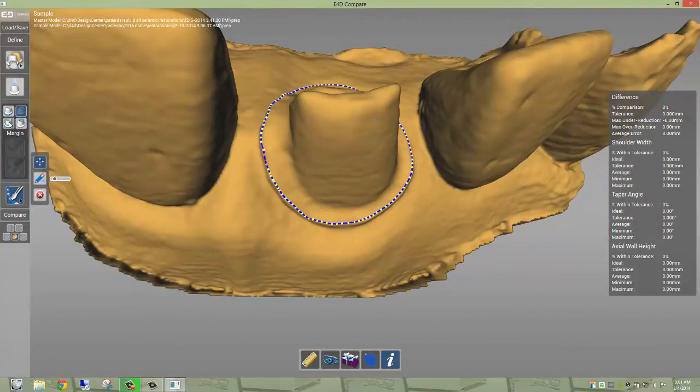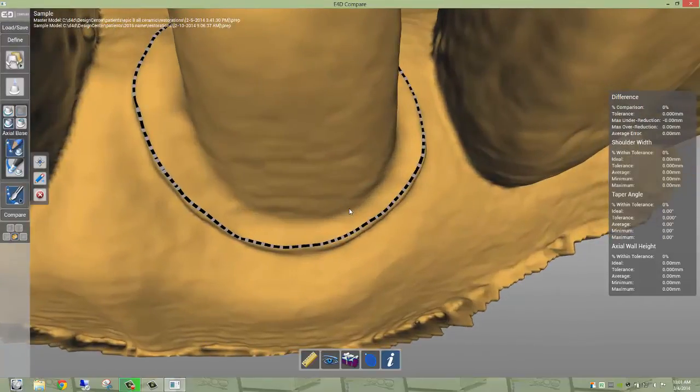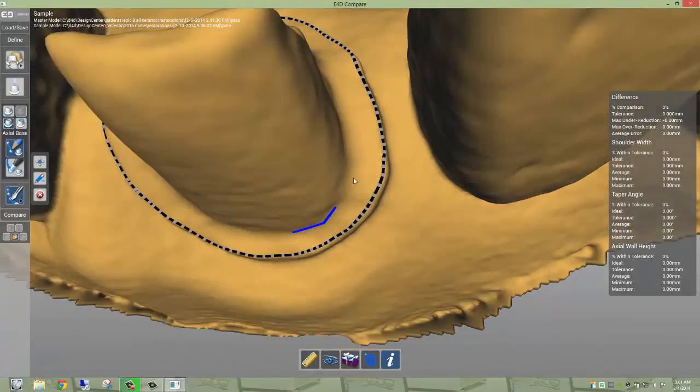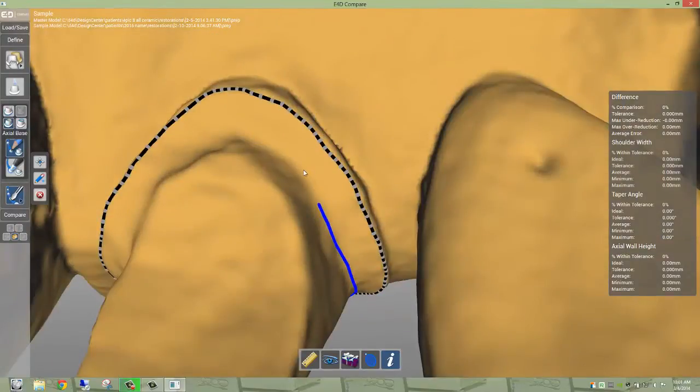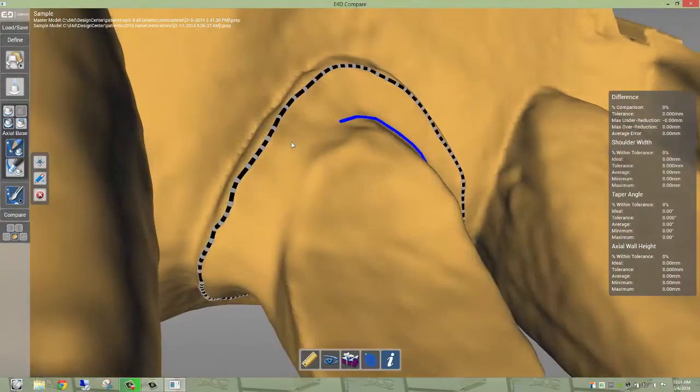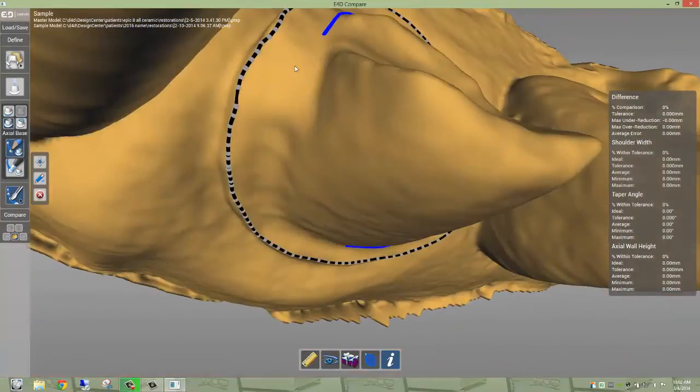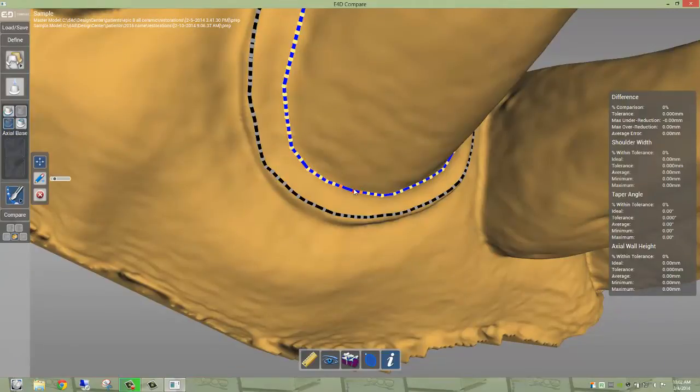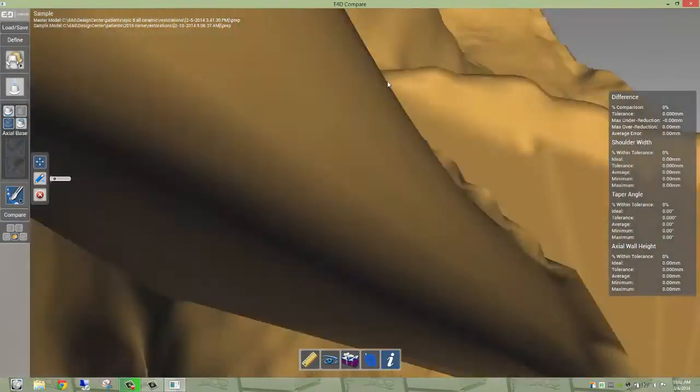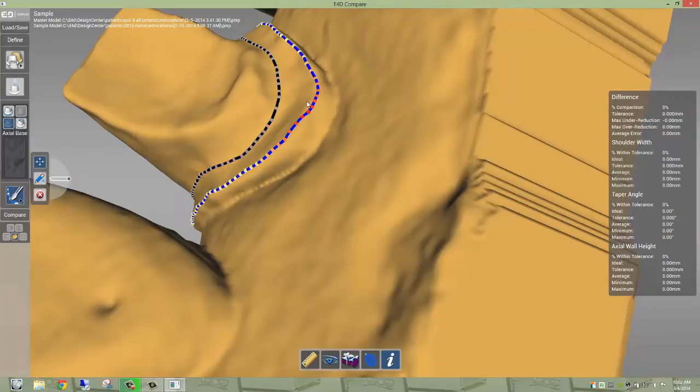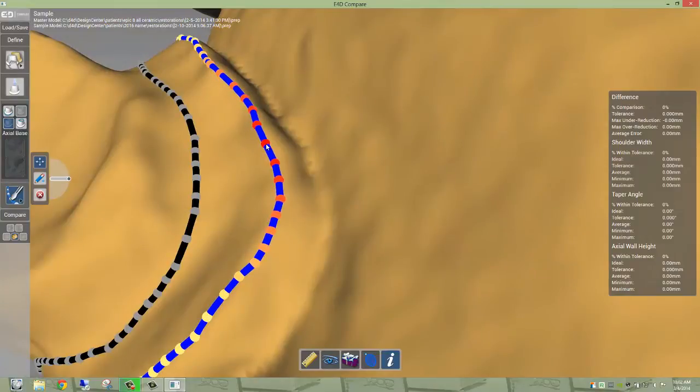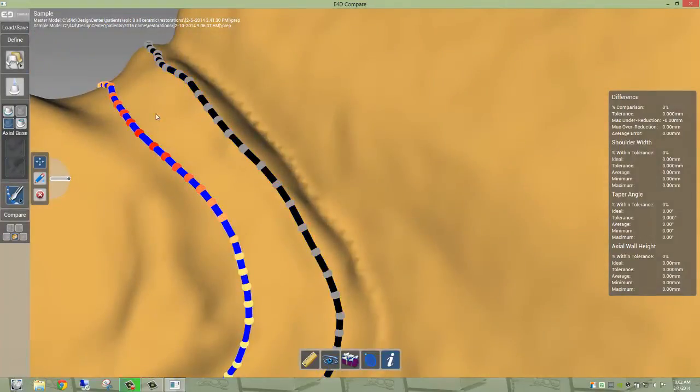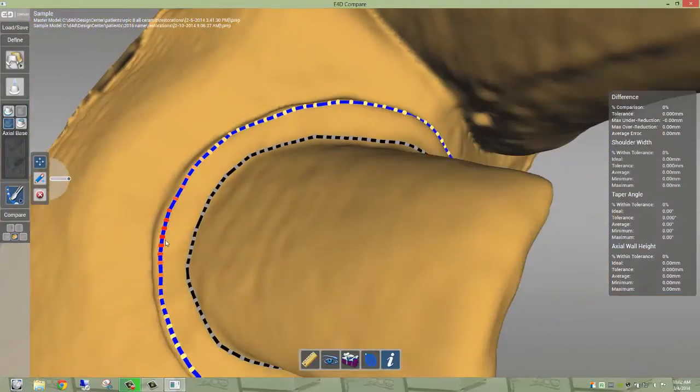Alright, we're going to move on now to the axial base. And for this one, I'm going to use trace. Trace does not have any automatic feature whatsoever. So wherever I click, it goes. And so you're just clicking along in steps, and you're trying to find and demarcate the internal line angle of that finish line. And so for a chamfer, it's a little bit more difficult, but we teach a shoulder. So there should be a pretty distinct, it's a rounded shoulder, so there should be a distinct angle to where the axial wall starts to curve up. And so both these are live, so if I just toggle between them, I could, if I saw something on this one, I don't have to click any buttons. I could automatically adjust them together. As I'm looking right here, I need to pull this out.